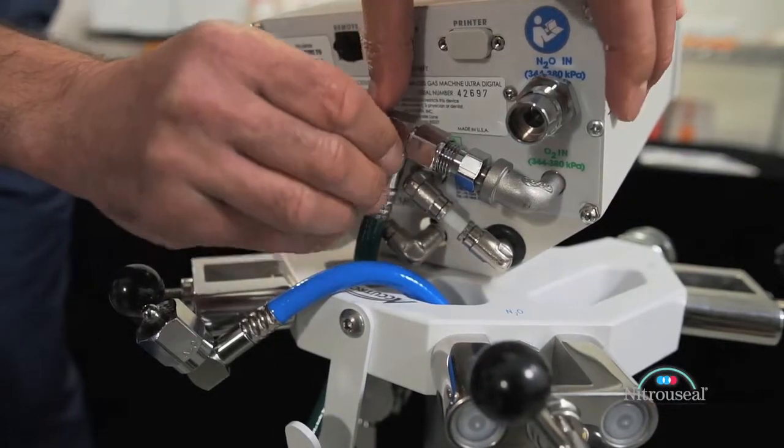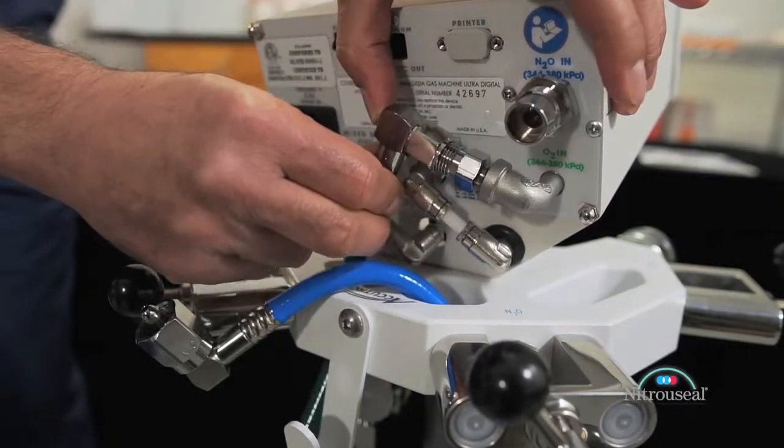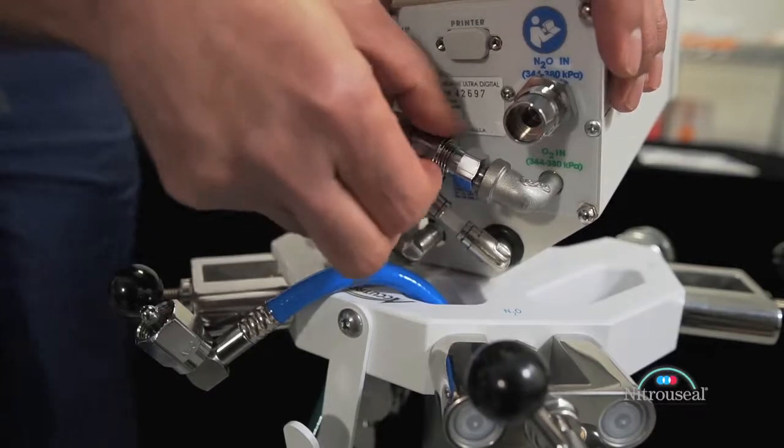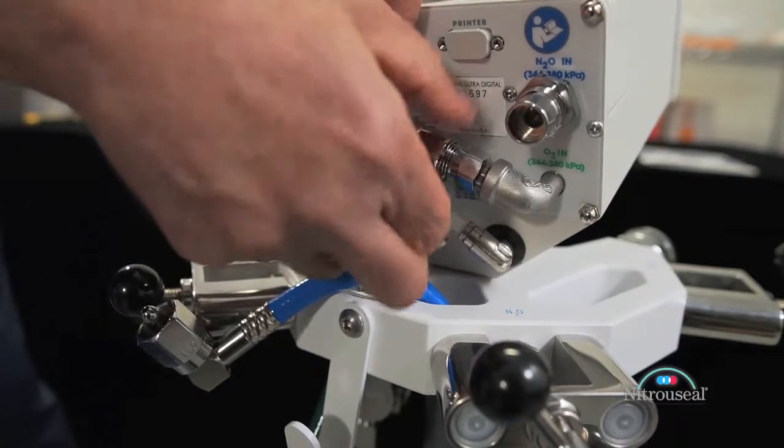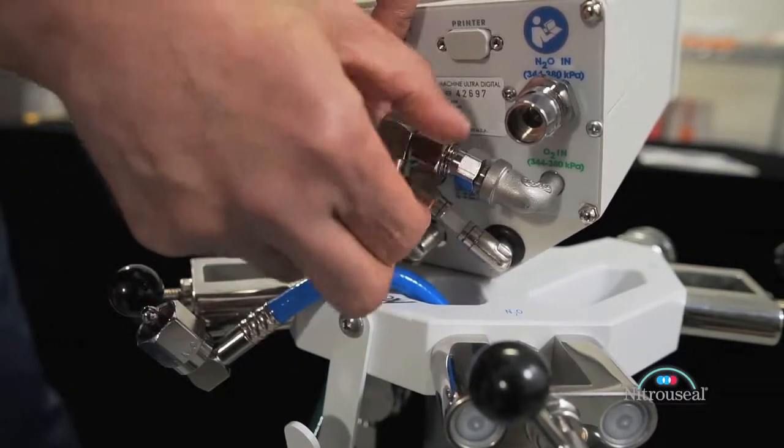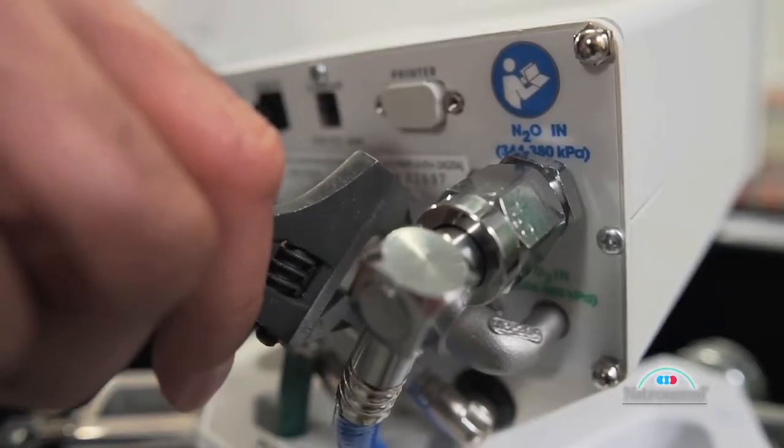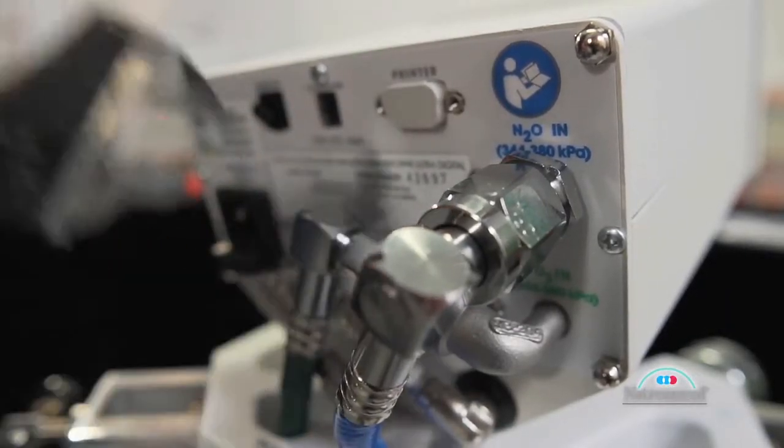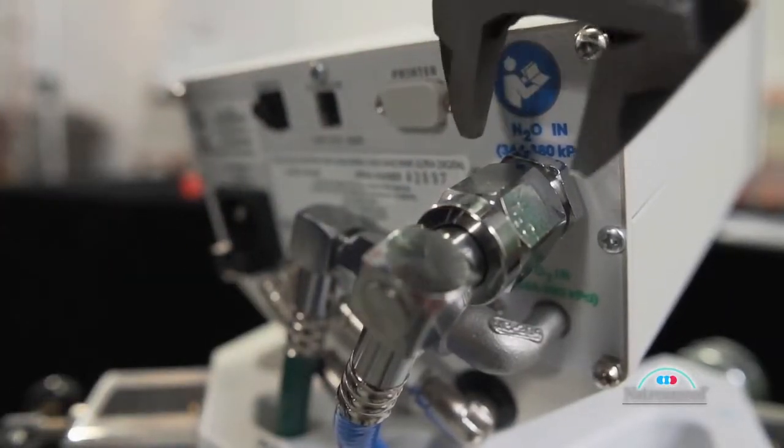Tighten each coupling by hand. Then use an adjustable wrench to tighten securely. Be careful not to over-tighten.